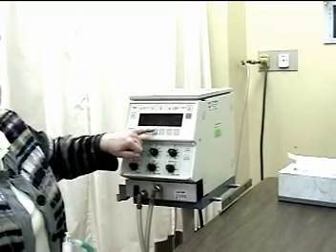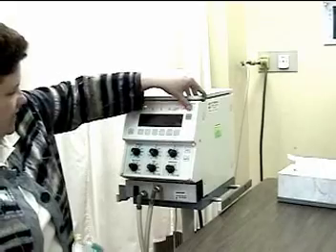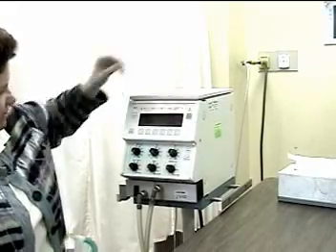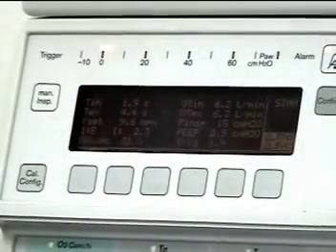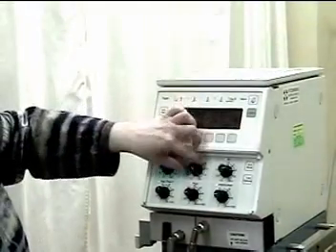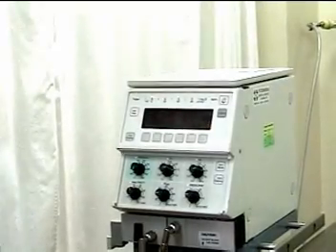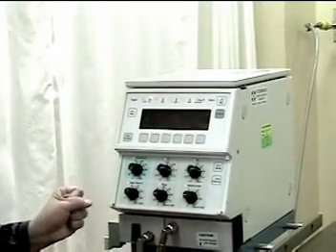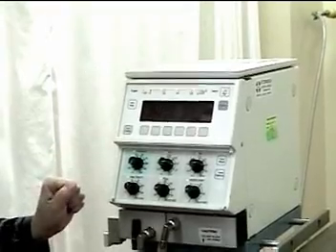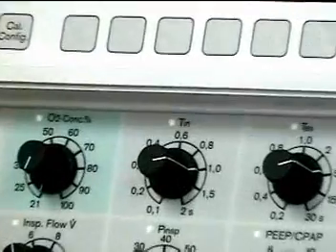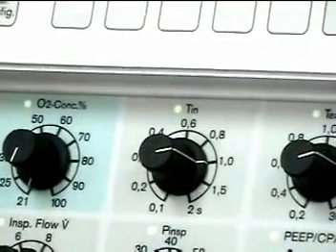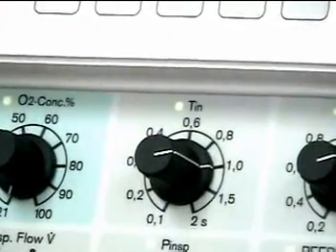I've pushed the set button. If I initially want an inspiratory time of one second, I'm going to adjust the dial to one comma zero. You'll notice that on this ventilator, the settings are just a little bit different than on the other ventilators. Instead of one point zero, you're going to note one comma zero — it's just a difference from the manufacturing.